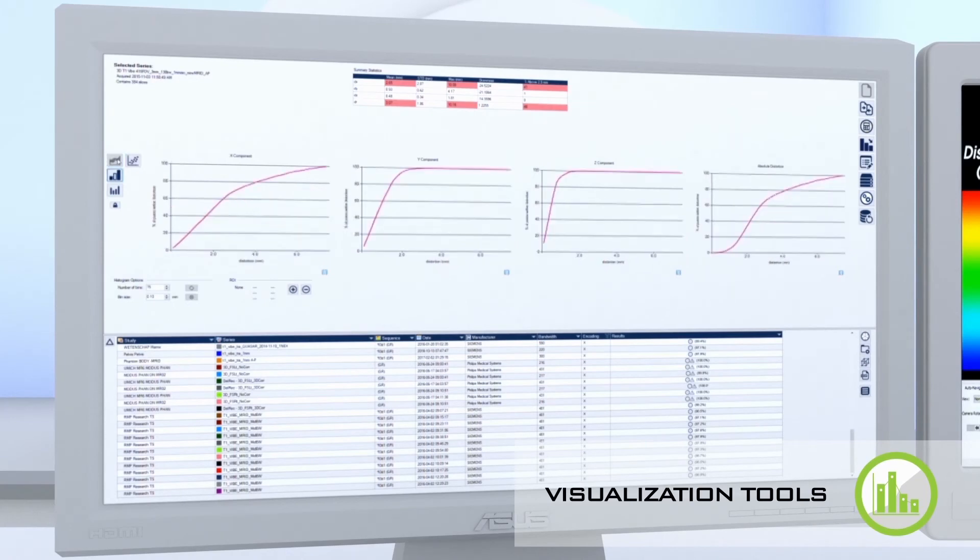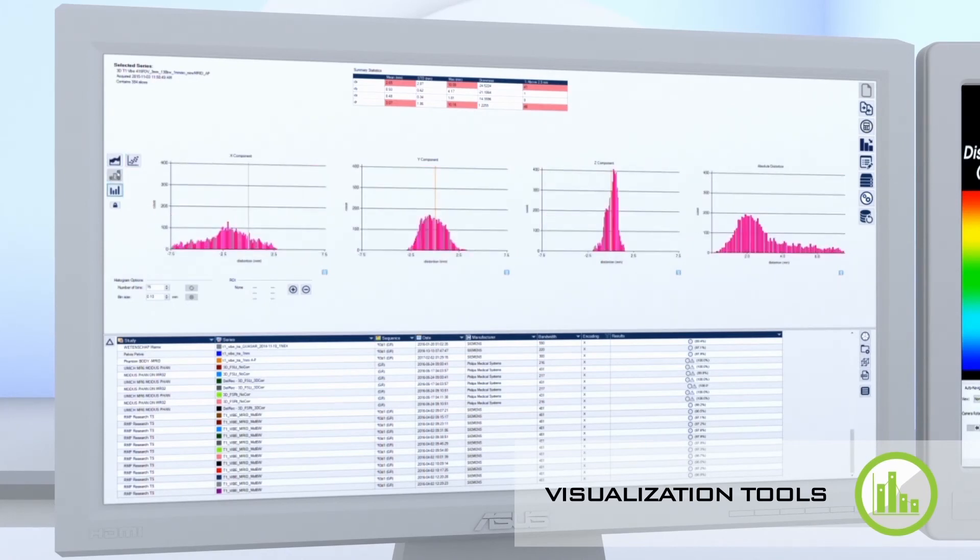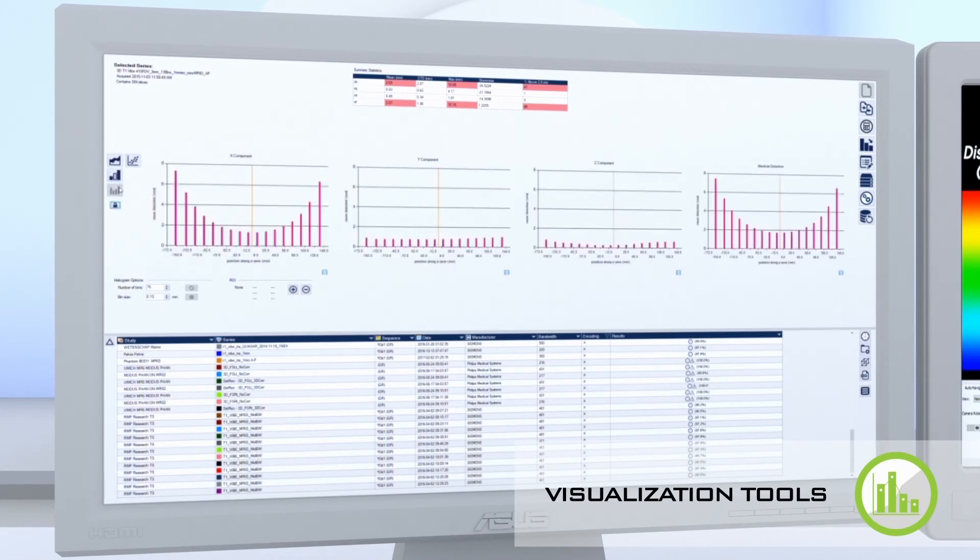Interactive statistical graphics allow users to explore, discover, summarize, and visualize quantitative data in the way they see fit to form conclusions and make decisions.